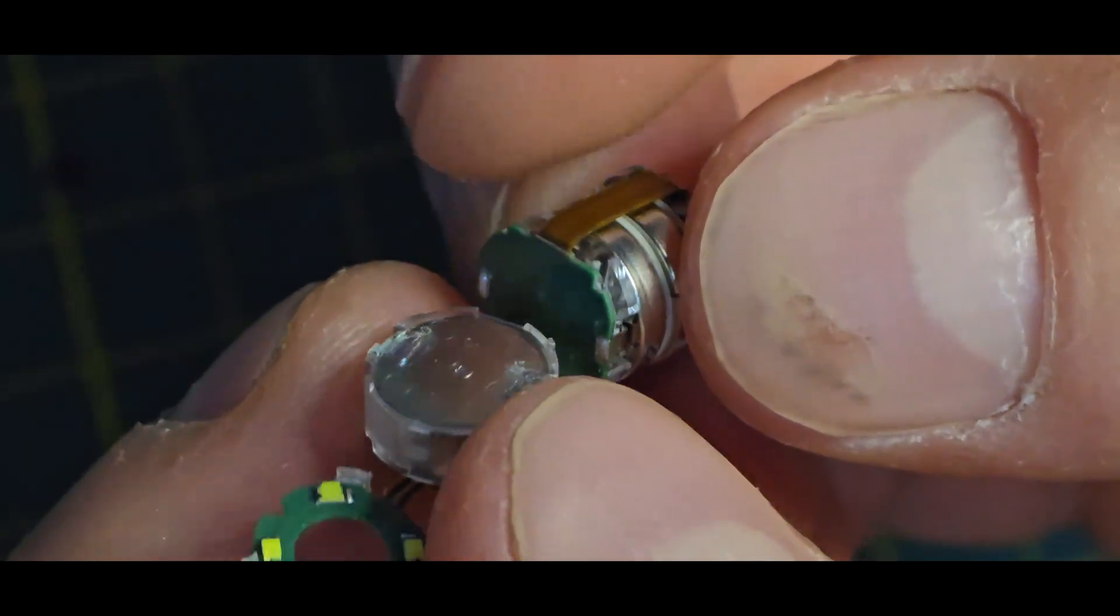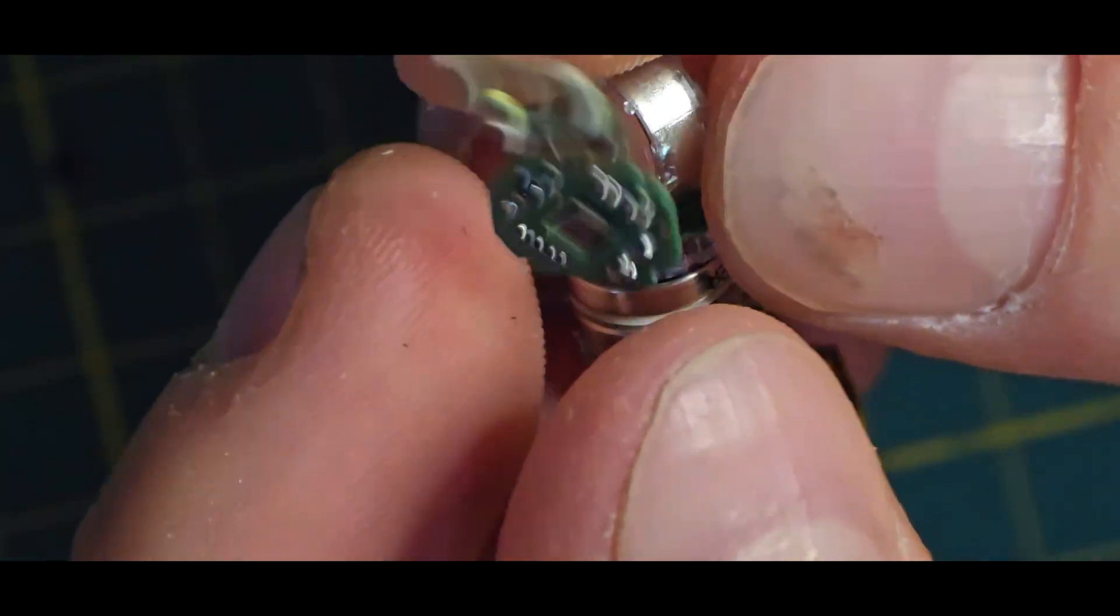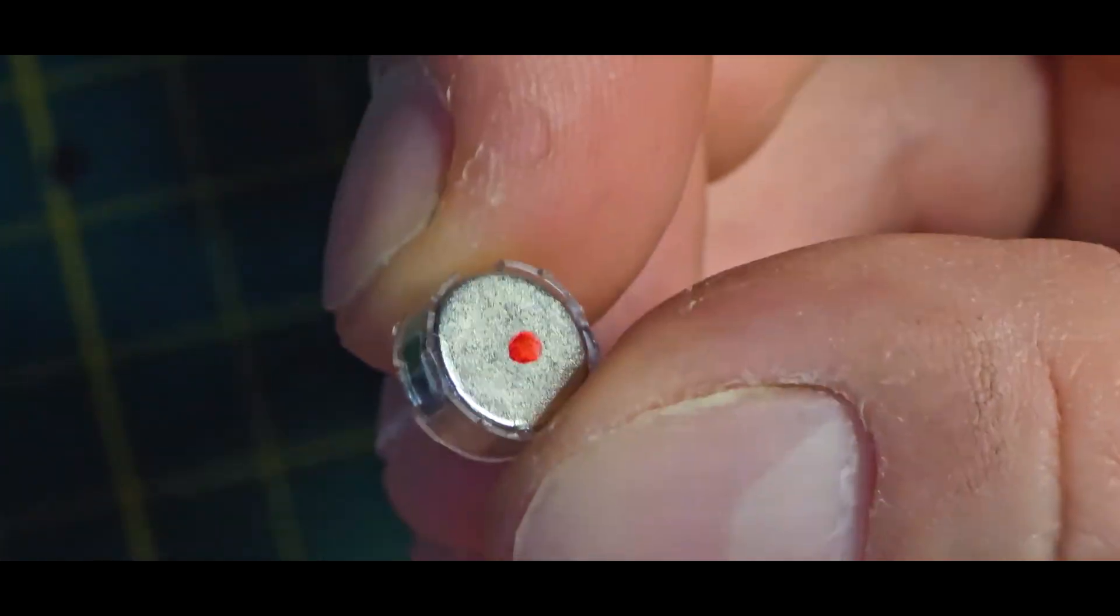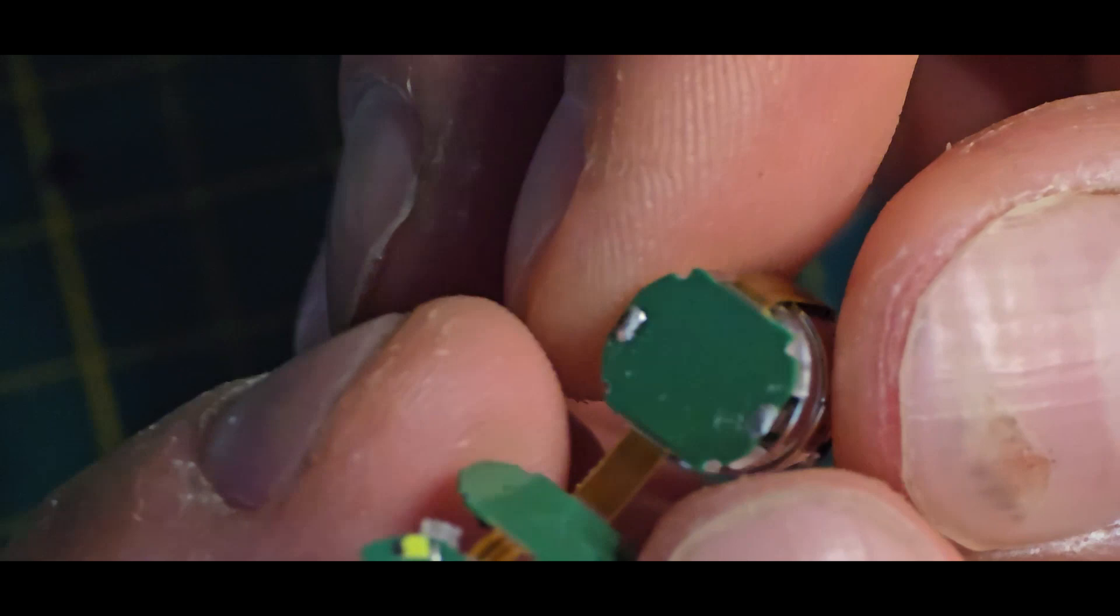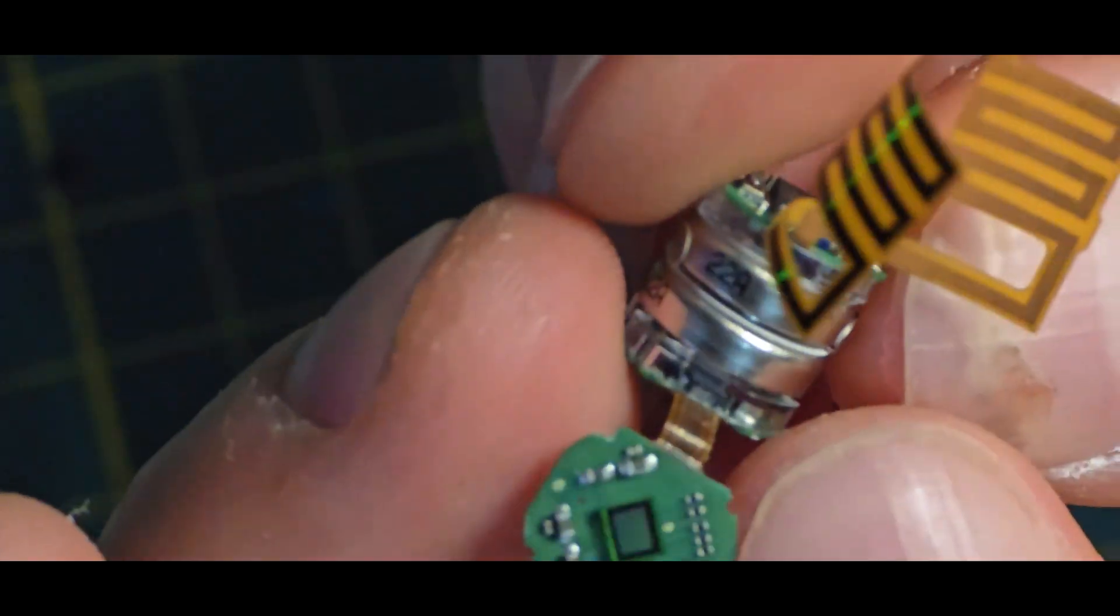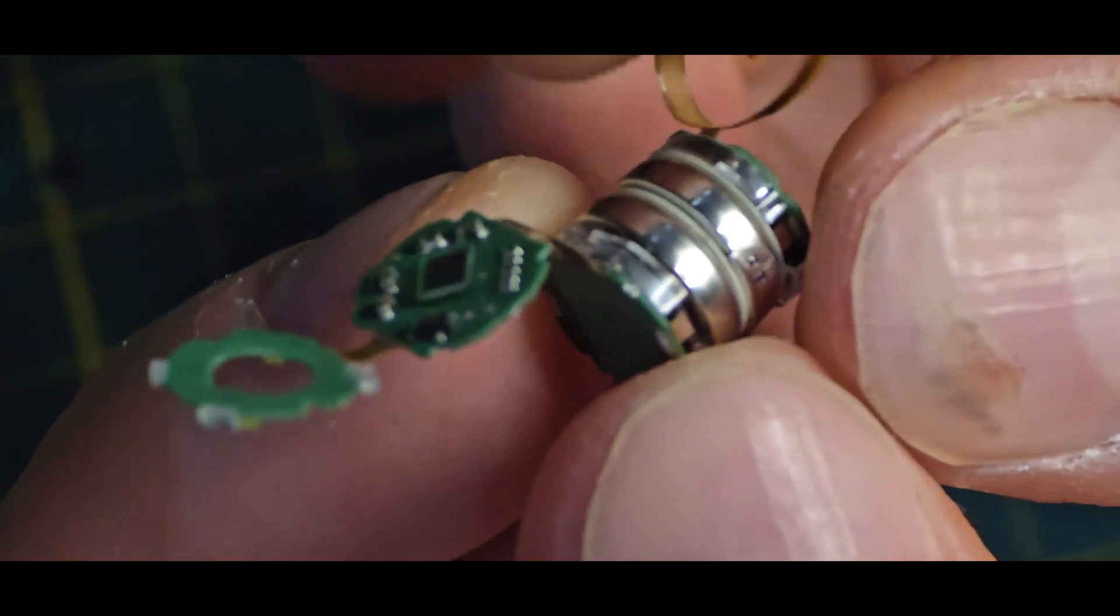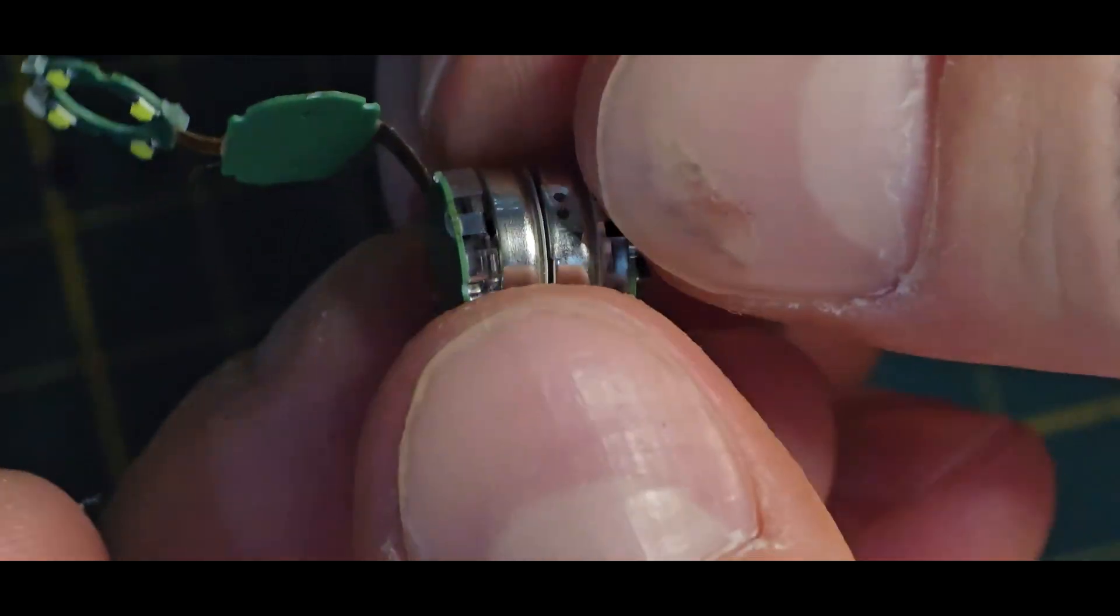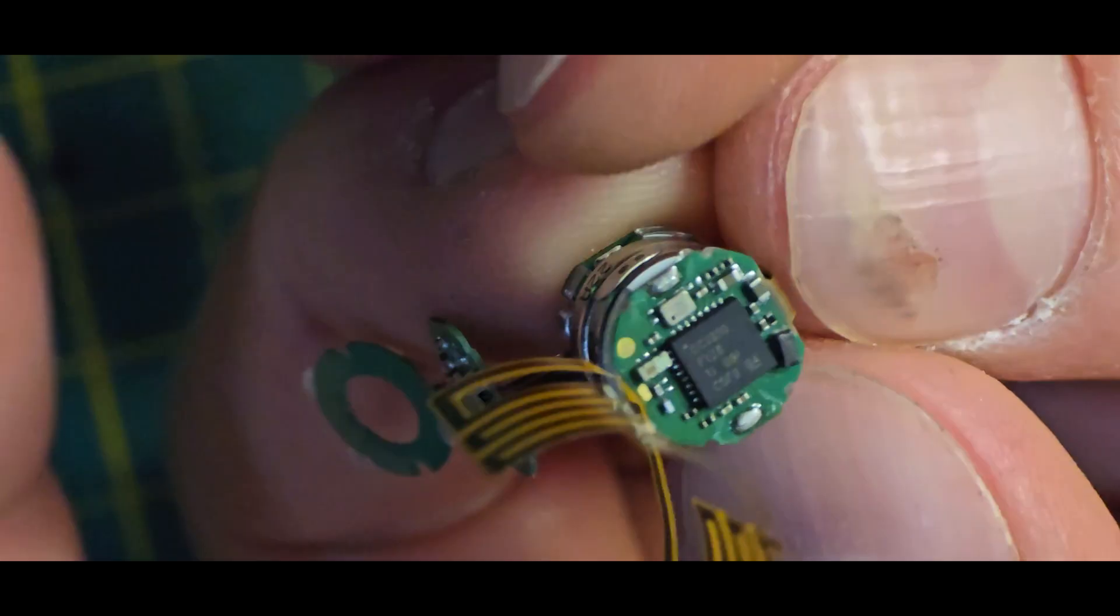Okay the magnet comes apart with it. So we might need to remove it first. Yeah that looks good. Yeah so the magnet is this really big part. And I'm really not so sure if it's good if it's inside of your body that way, because normally you should not get any magnet inside of your body. But okay they will know what they do here.